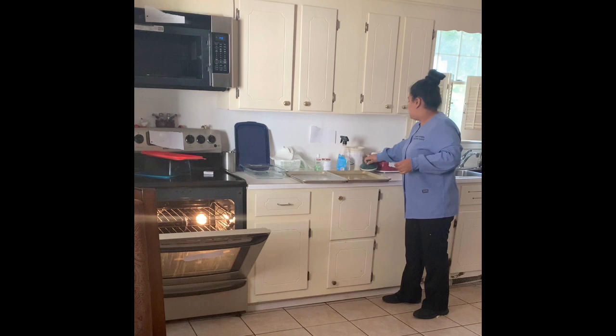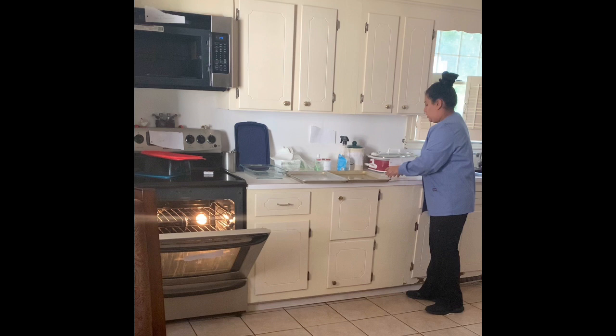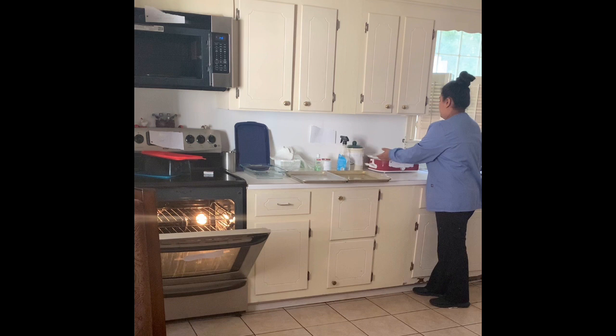The Assistina should be done. I'll take that out, unscrew it, put the applicator back, and pull it out — these should be good for packaging. By now my ultrasonic cleaner should be done. I'm going to take the lid off, reach in there, take the basket out, and tilt it to the side making sure all the water comes out — as much water as I can.